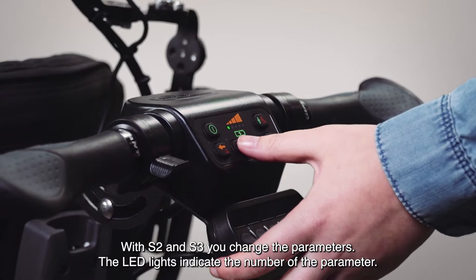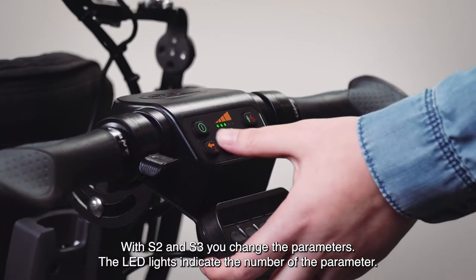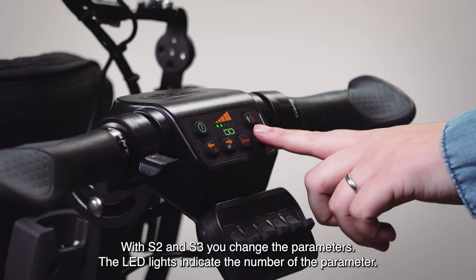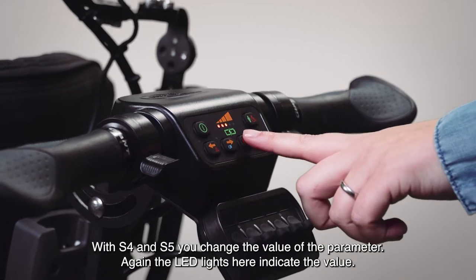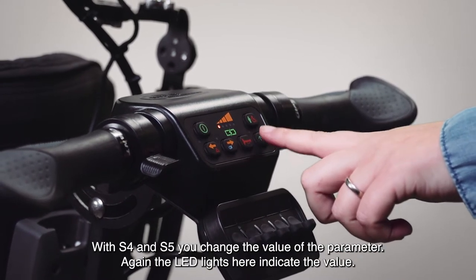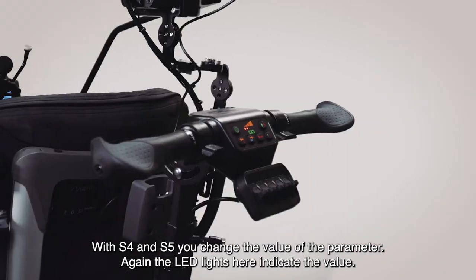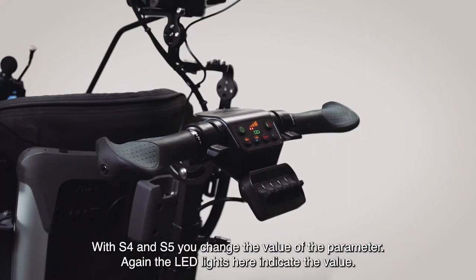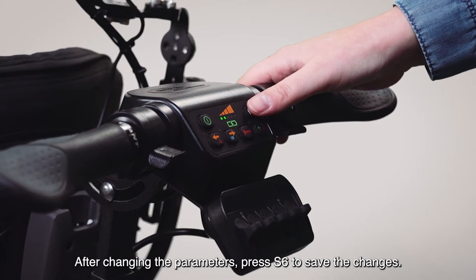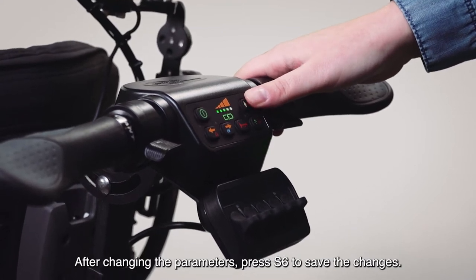With the second and the third button you change the parameters. The LED lights indicate the number of the parameter. With the fourth and fifth button you change the value of the parameter. The LED lights here indicate the value. After changing the parameters, press the sixth button to save the changes.